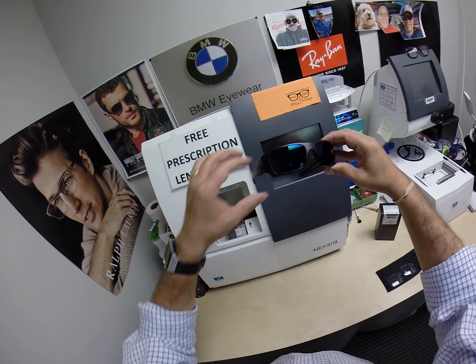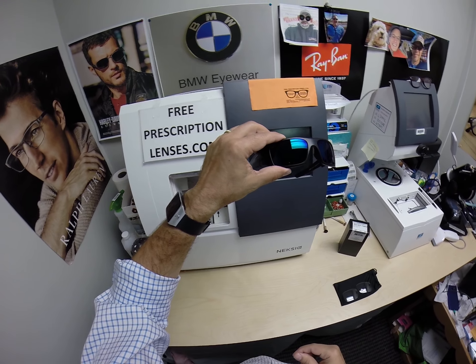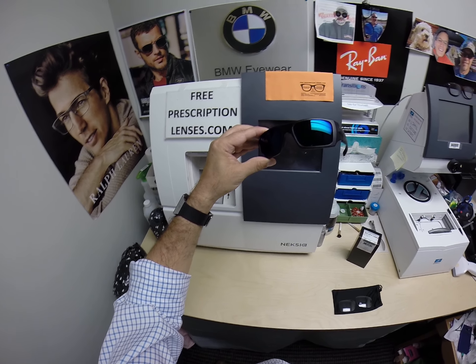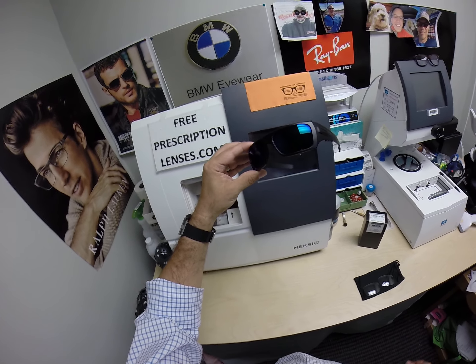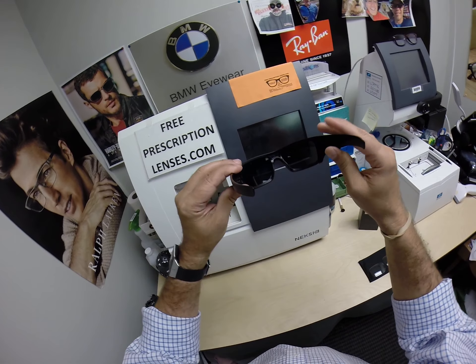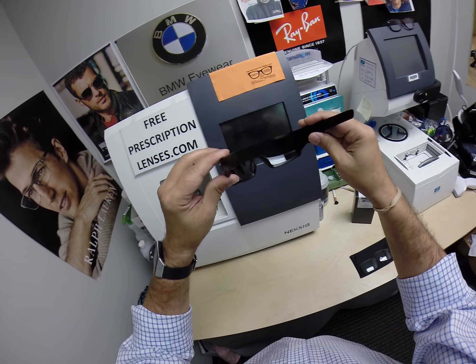Transitions 7 and 8 block about 30 to 40 percent of harmful blue light. These XTRAactive block 50 to 70 percent of harmful blue light emitted from today's electronic devices, such as cell phones, tablets, and computer screens. On top of all of that, it even comes with its own back surface anti-glare coating, so you lose nothing.